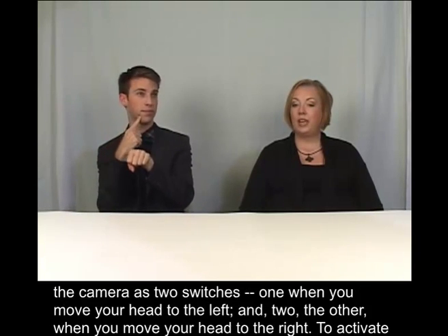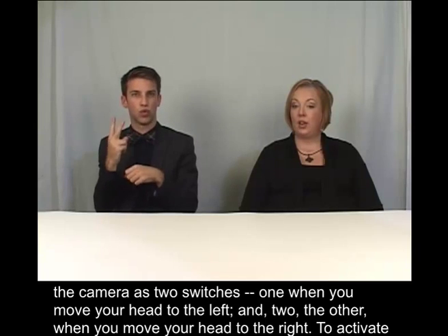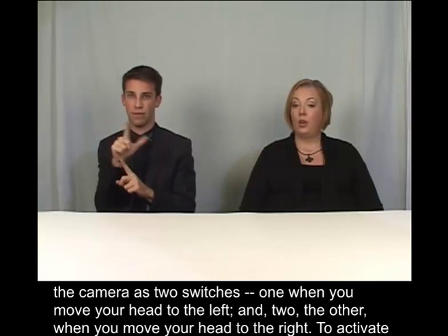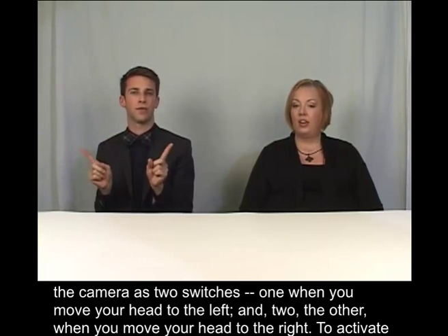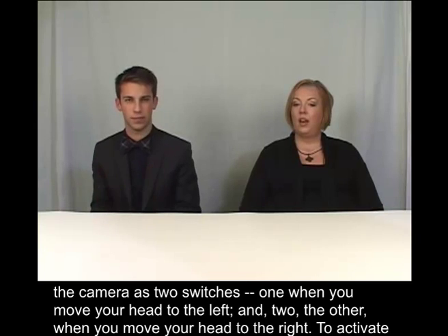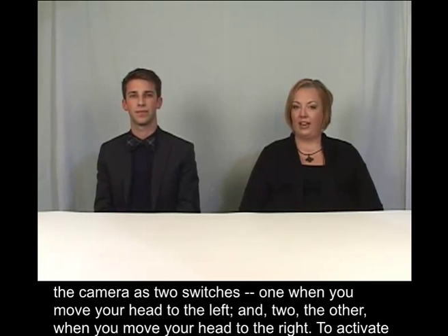You can use the camera as two switches: one when you move your head to the left, and two when you move your head to the right.